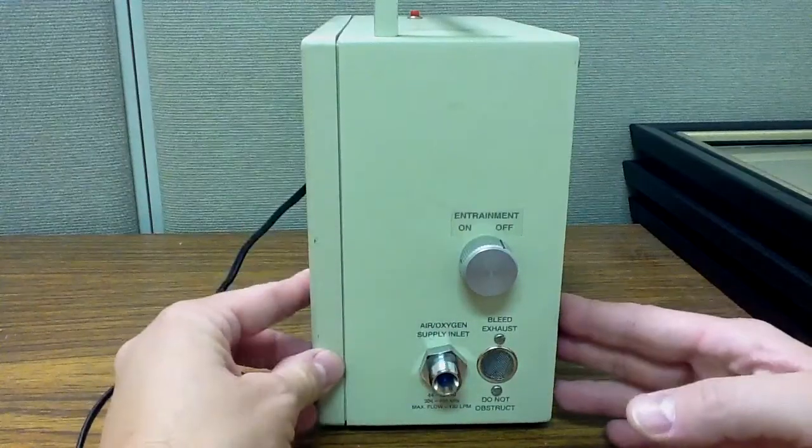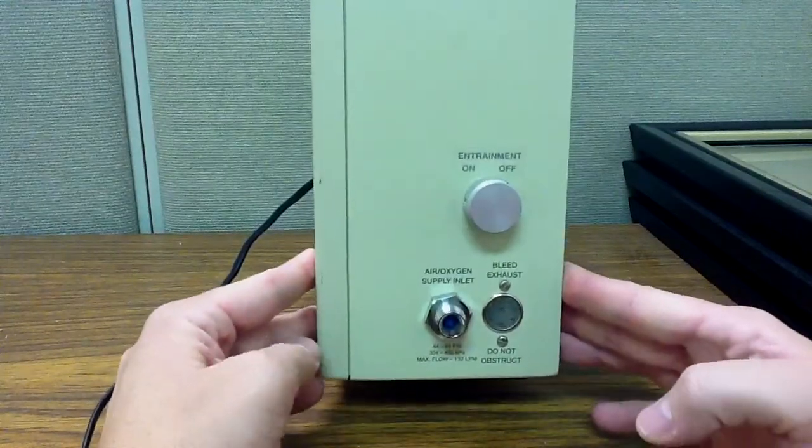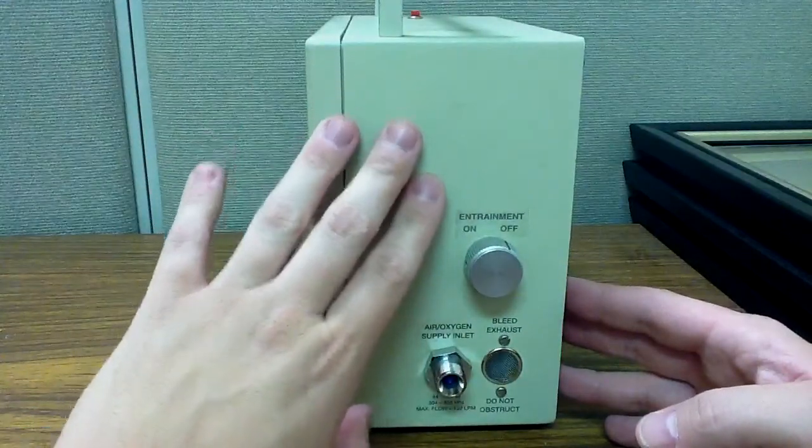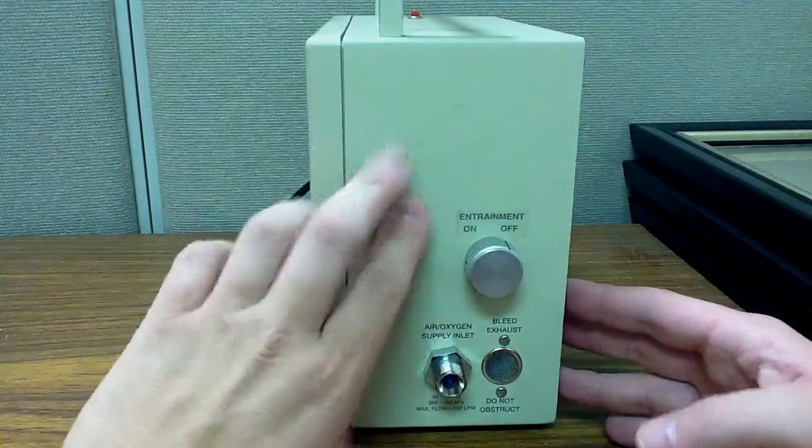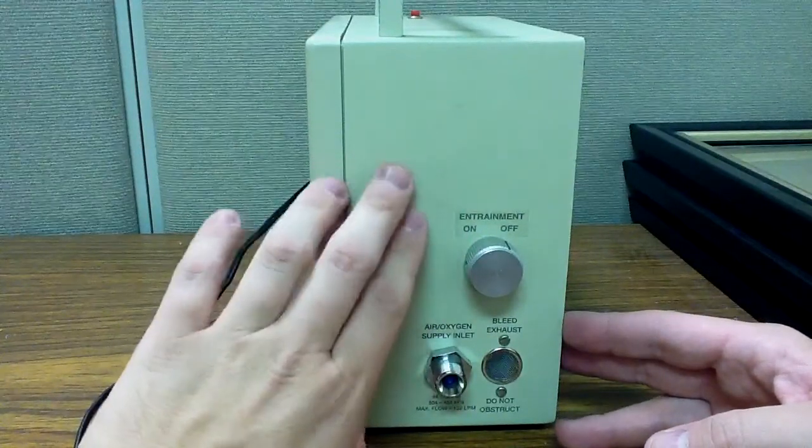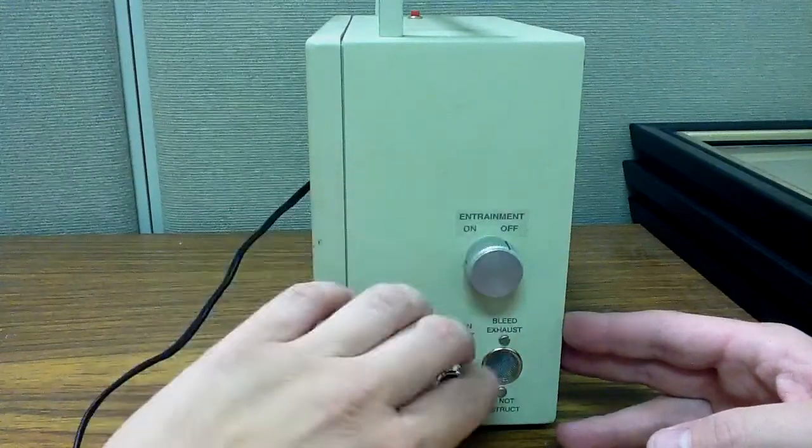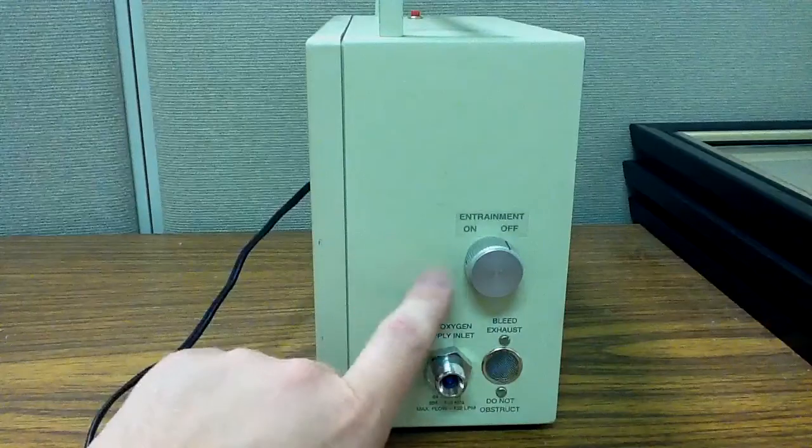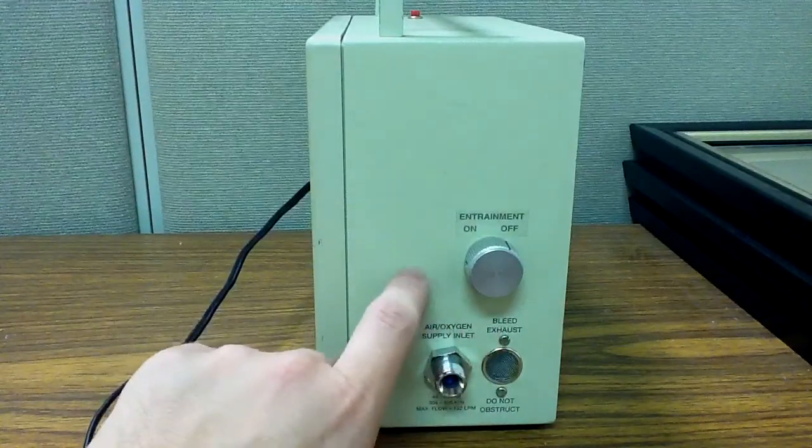A thing to note about this specific ventilator here is that it does not have a turbine or a compressor like the LTV-1200. So it cannot ventilate on room air. It needs a constant supply of gas. It needs a constant high-pressure gas source. If you run out of gas, i.e. oxygen, your ventilator no longer works.